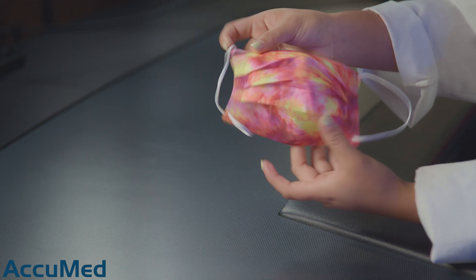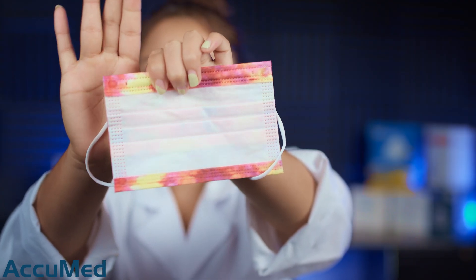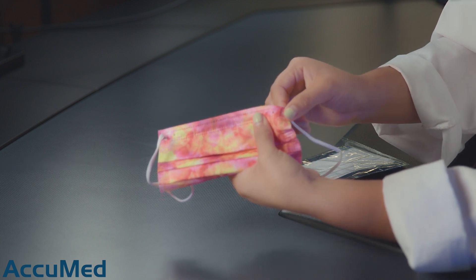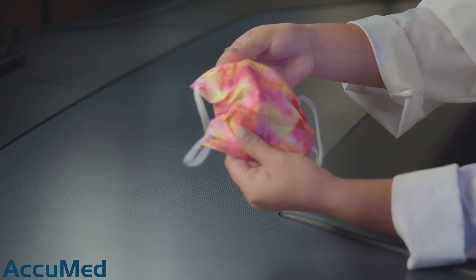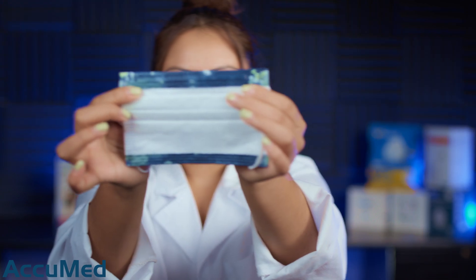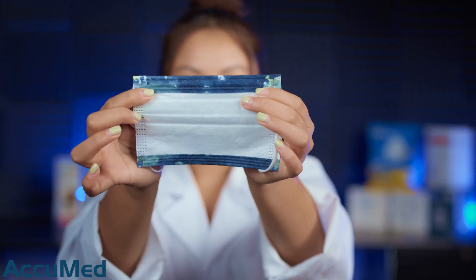These masks have a hole right on the front of the mask. The quality of these are just very standard for a disposable mask. This blue one also has those two little holes. The nose wire is very flimsy.